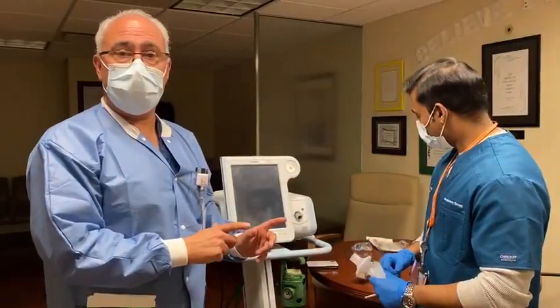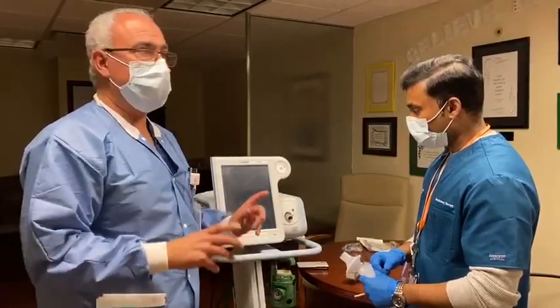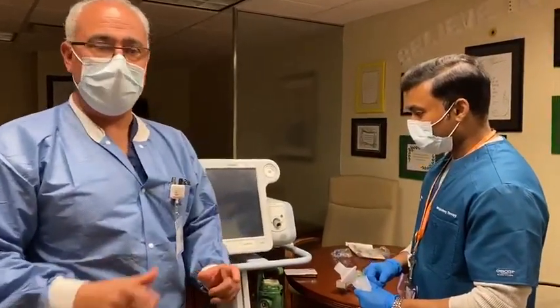Stanley John, my director of respiratory therapy, is going to go through starting the BiPAP machine on and doing the test, and by the end of this video, you're going to see how to have this set up in your individual hospital. Stanley, please take over.